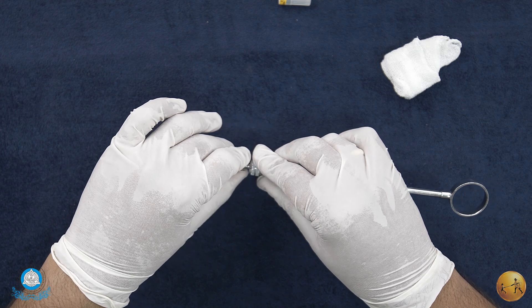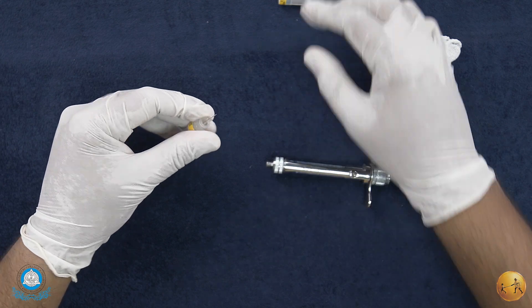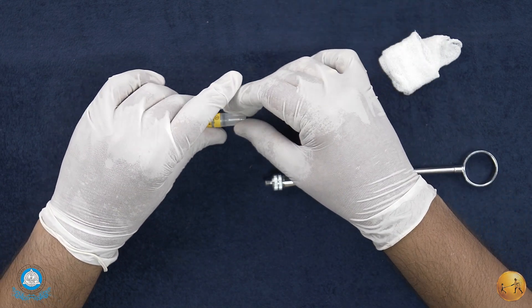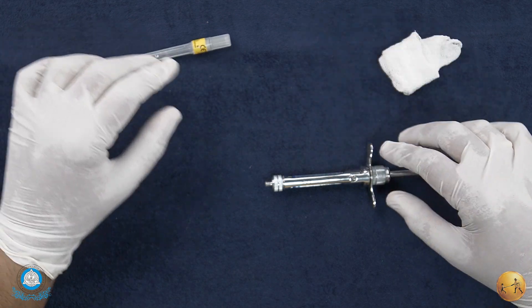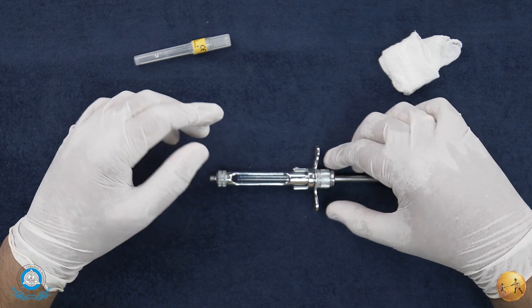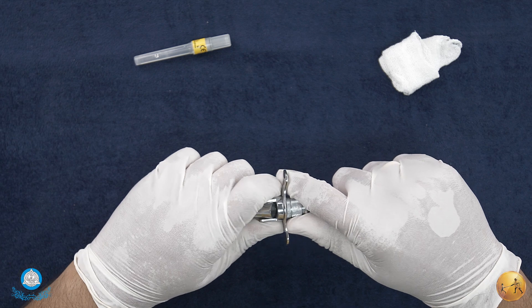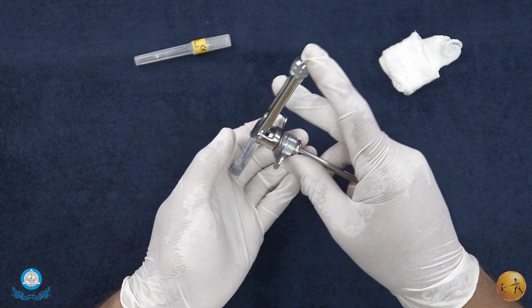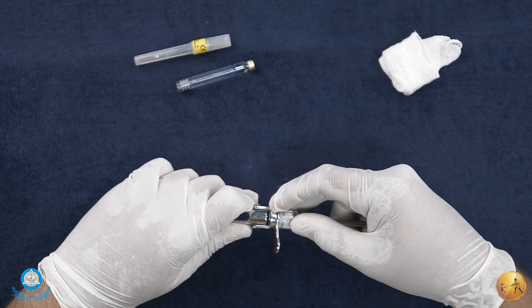You see here the needle has been rotated and is now pulled out, which again has to be clearly secured and can then be dispensed into a safe disposable unit or a unit that is designed to accept sharps.